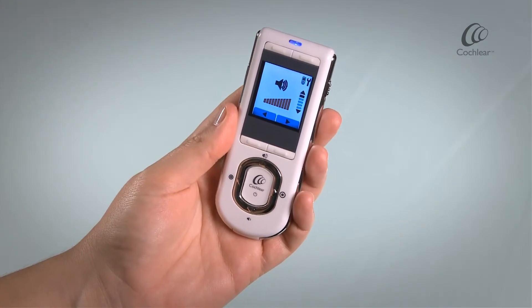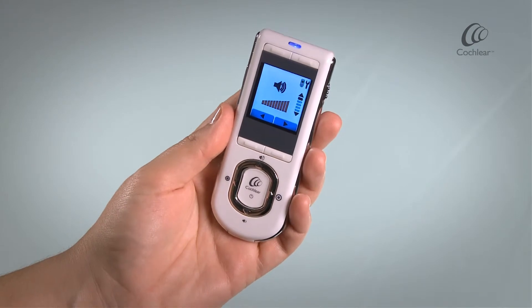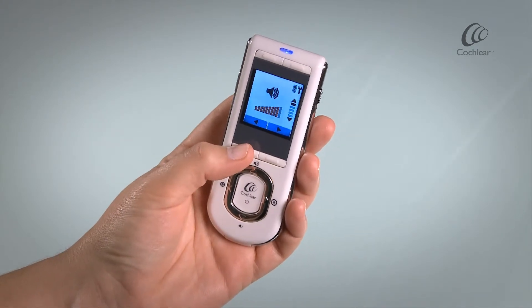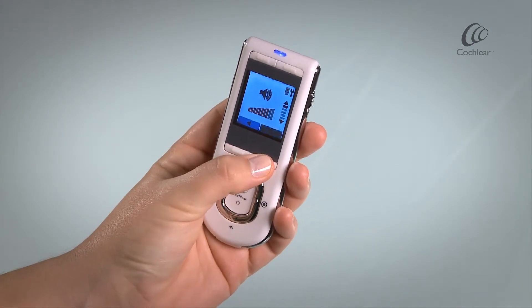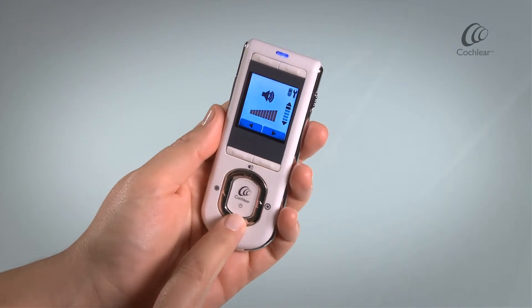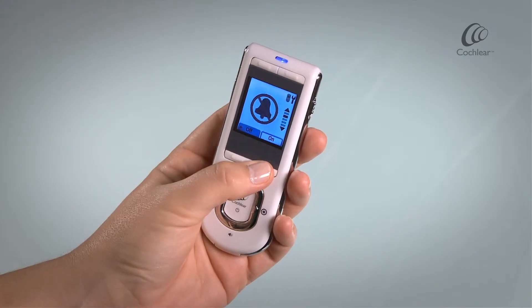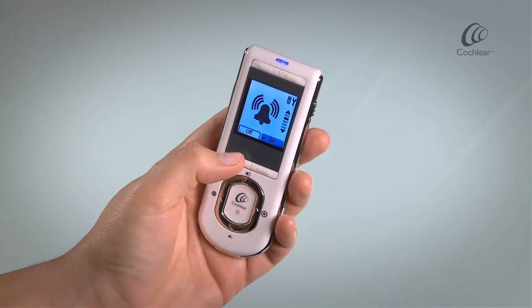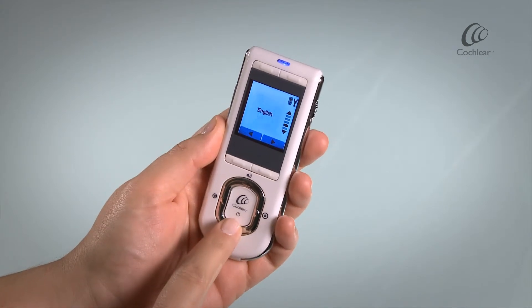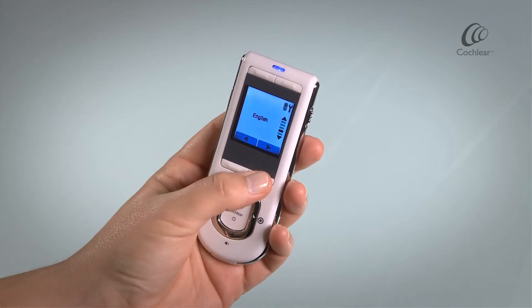From this screen, you can use your directional keys to navigate down the menu. You can change the speaker volume, enable and disable your remote assistant alarms, and select your remote assistant language.